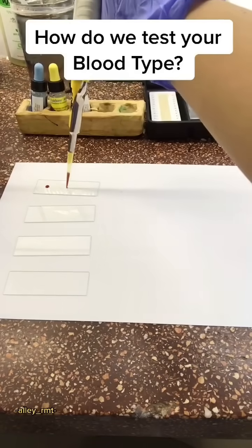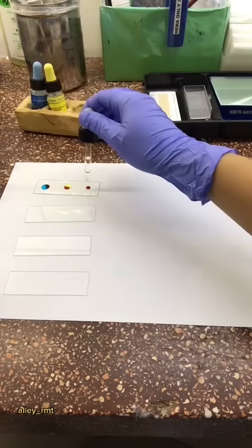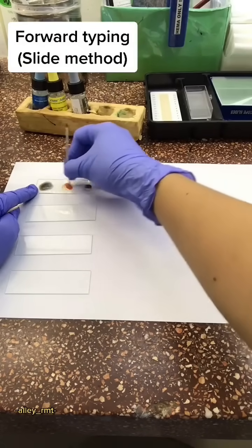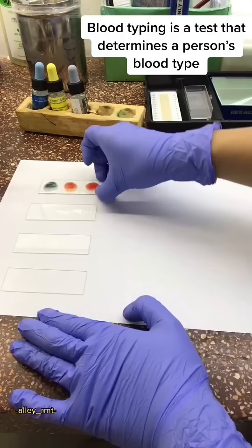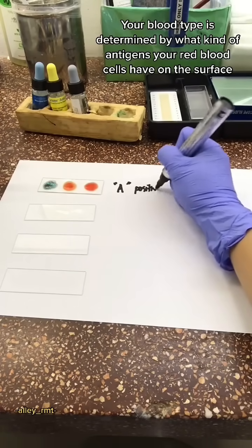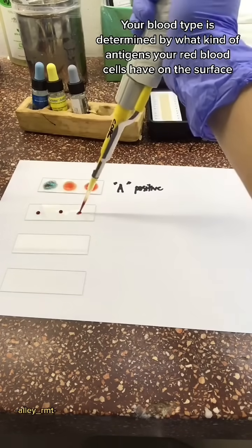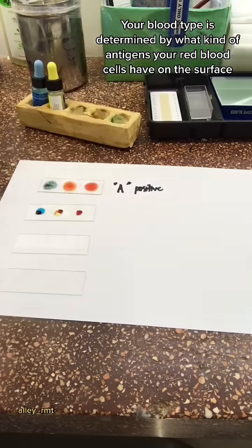How do we test your blood type? This method is called the Forward Typing Slide Method. Blood typing is a test that determines a person's blood type. Your blood type is determined by what kind of antigens your red blood cells have on the surface.